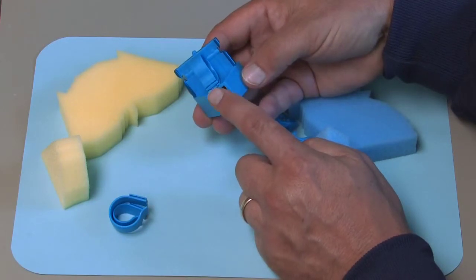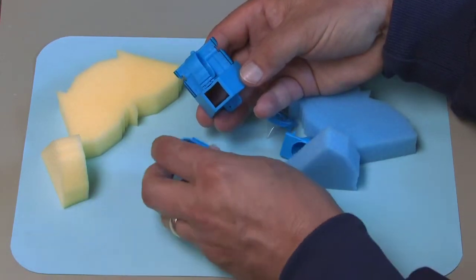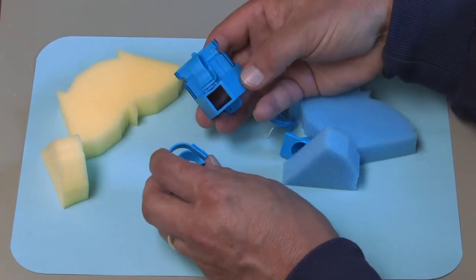It is important to know that once the ring is locked onto the cup, it cannot be removed without damage to the ring and the cup.